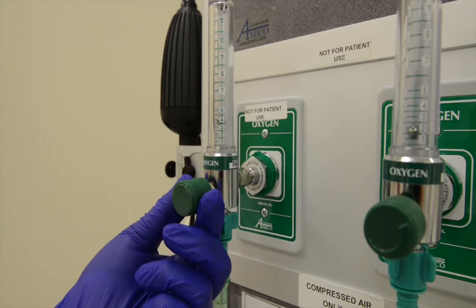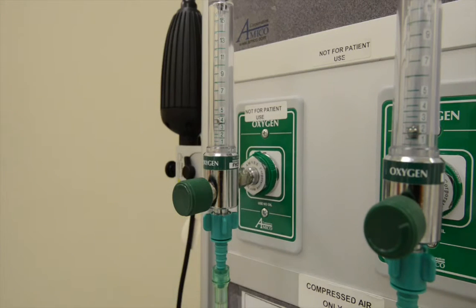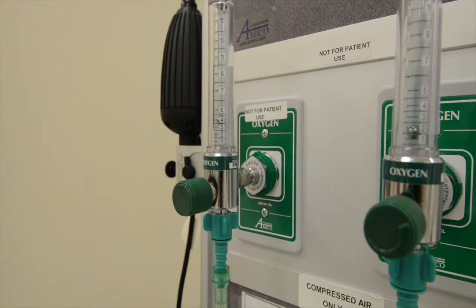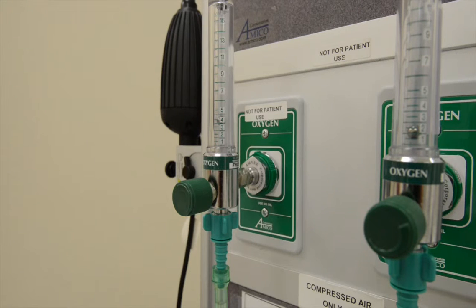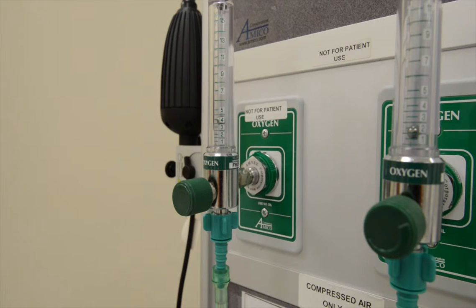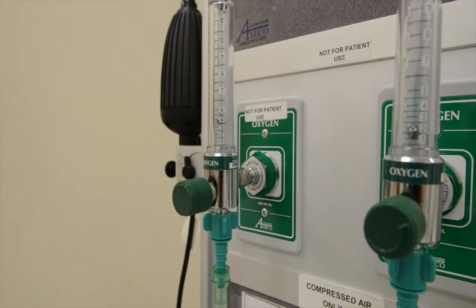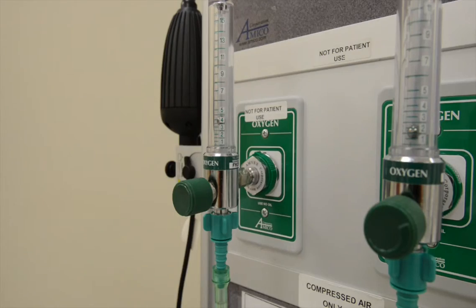Hypothetically, the physician has ordered this patient to be on 4 liters. Also, as a reminder, this is 100% oxygen since it's coming directly off the wall.